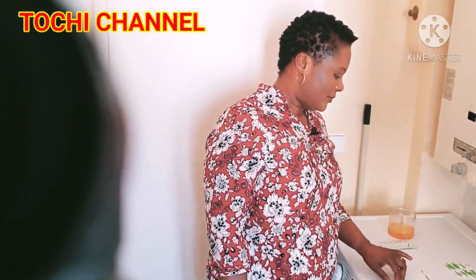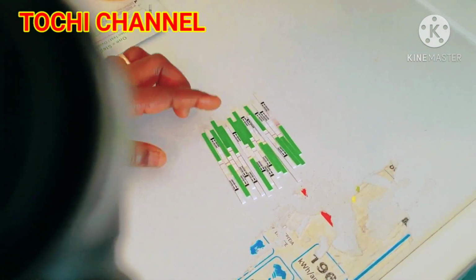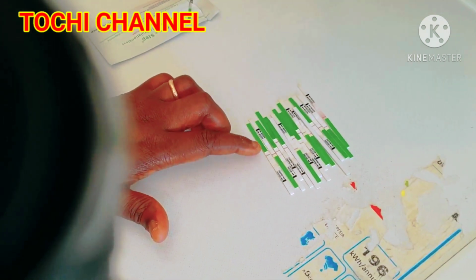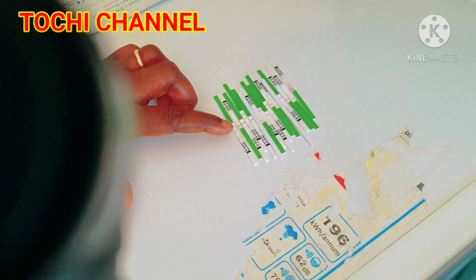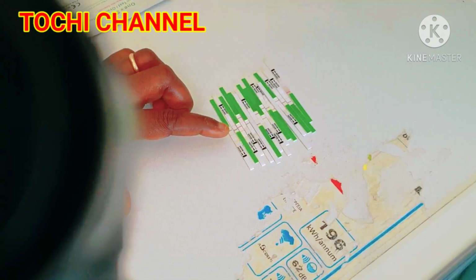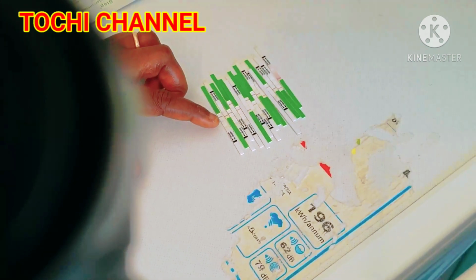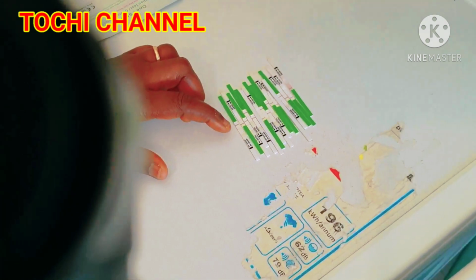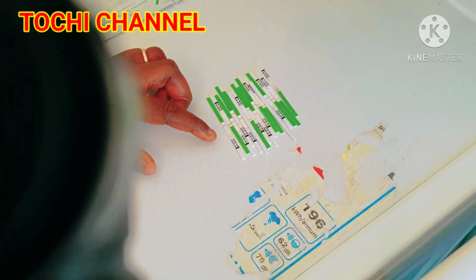So after that, this is the result. As you can see, I don't know if you can see it very well. You have to do it for 5 days, as I said. This is the result. When the test line is as dark as the control line, it means that you are going to be ovulating in the next 12 to 48 hours, or the test line may be even darker than the control line. You know that you will be ovulating in the same 12 to 48 hours.